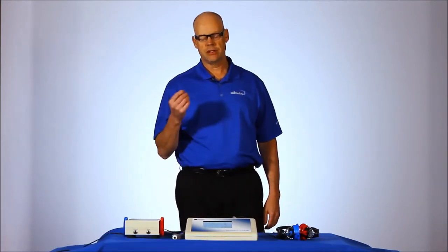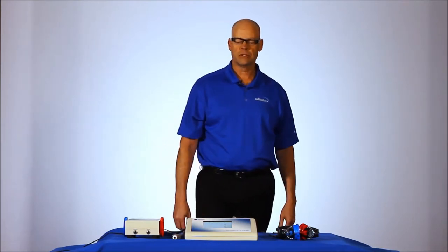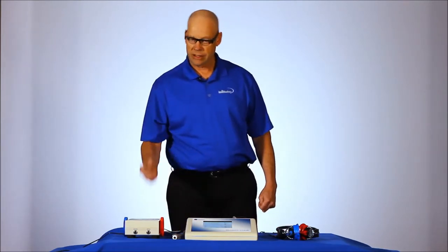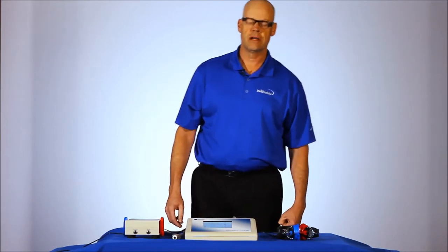Hello, my name is Bruce Gibson. I'm the Occupational Health Product Manager here at Levitt Safety. Today we're here to introduce to you the Smart Tone Audiometer from Benson Medical. It's one of our newest audiometers that we're selling in Canada, and I'd just like to walk you through some of the features of this audiometer.